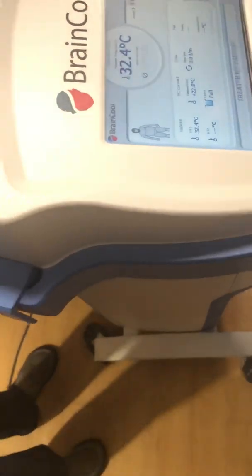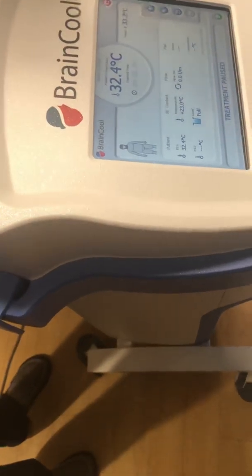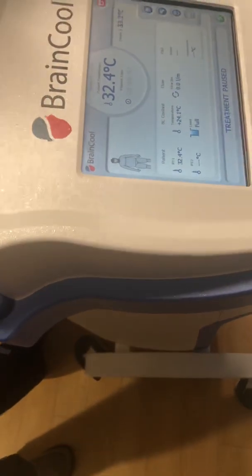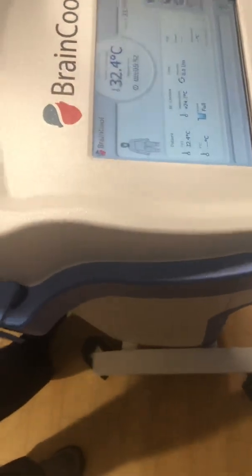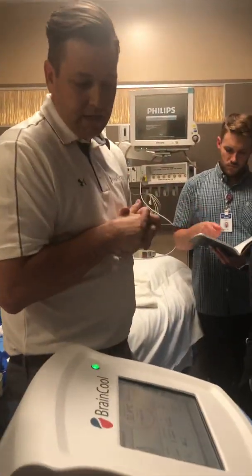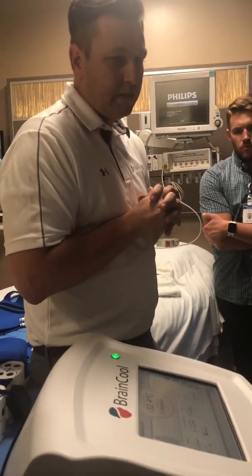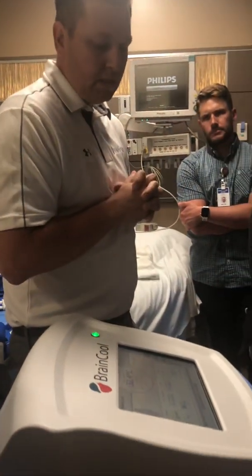I won't say easy. Once you get used to it, it does become much quicker. Where you guys are coming from intravascular, I recognize that this is a different step that you're probably not as used to, and you're probably like, this is not great. But you'll get used to it if you just give it a chance. I can guarantee it. I've seen it happen. I've seen the data, the studies, and the real patients. So I know how it works. But if you give it a chance, it's going to be a really good tool for you guys.